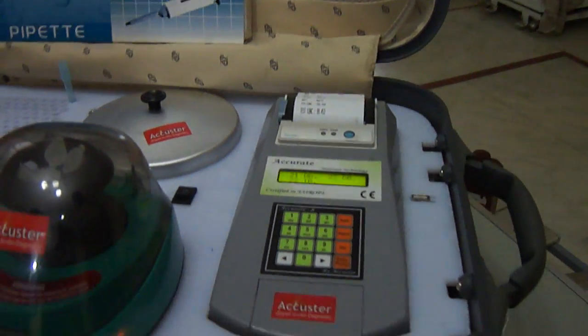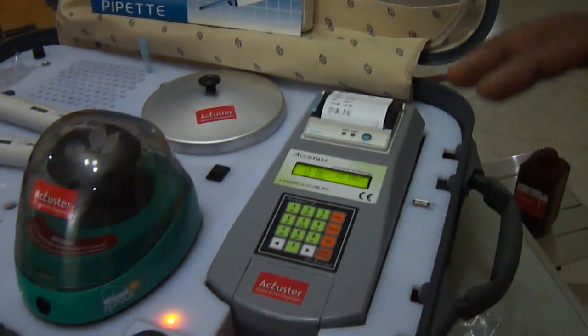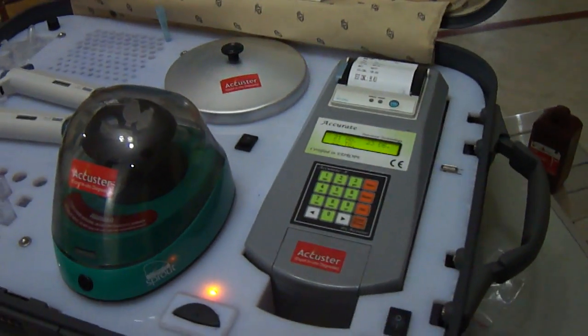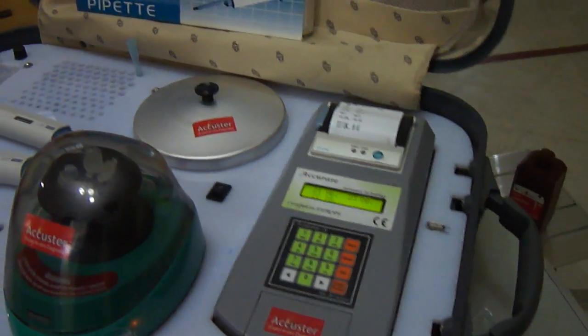All the tests mentioned on the display are performed in a very short time — within 3 seconds.